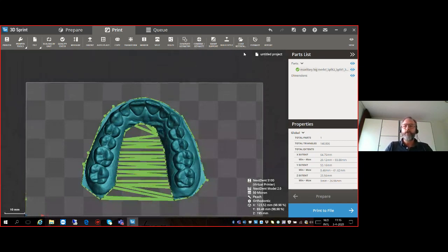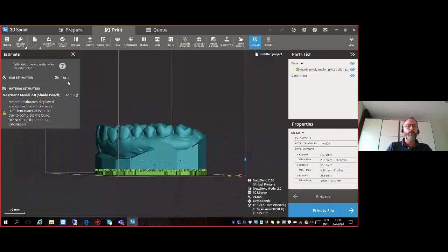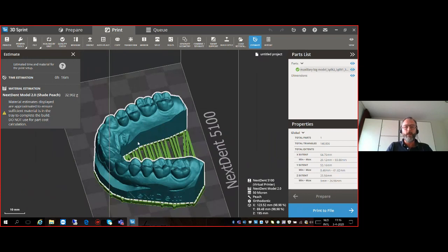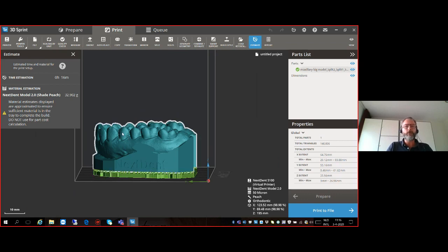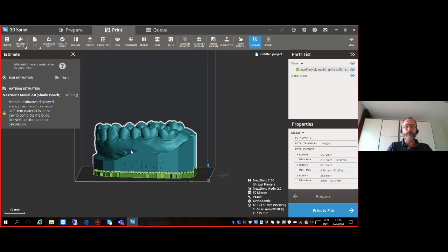A nice option is the Estimate button — how long will it take to print this model? This orthodontic model, though quite tall, will only take 16 minutes to print. We still have room on the platform, and if we add a second model that is somewhat shorter, the total print time will still be 16 minutes — because printing time is determined by the highest part. We also have the material estimation: Next Dent Model 2.0 shade Peach will require roughly 33 grams. That is a high estimate, because you don't want too little material in your resin tray.